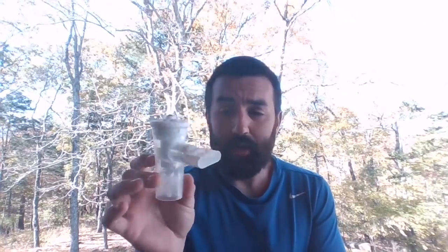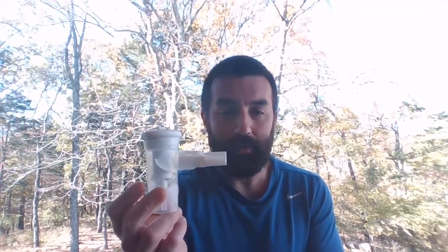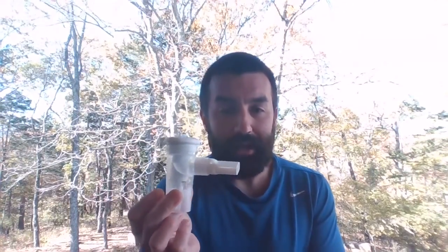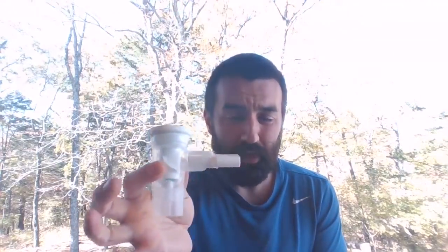And that is the Aero Eclipse, or we just call these BANs, breath actuated nebulizers. A BAN is substantially more expensive, but it is better for the patient. They're going to get more of that aerosol in a quicker treatment. We're being exposed to less medication, so it's more of a closed system, and there's less medication waste.